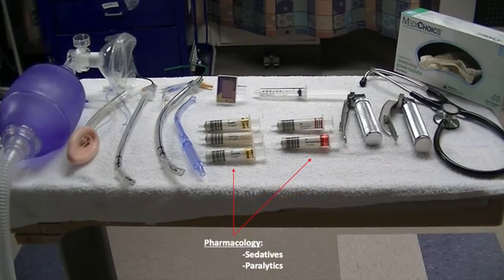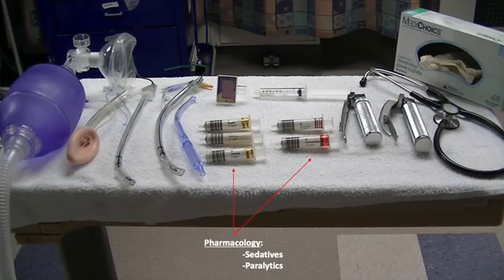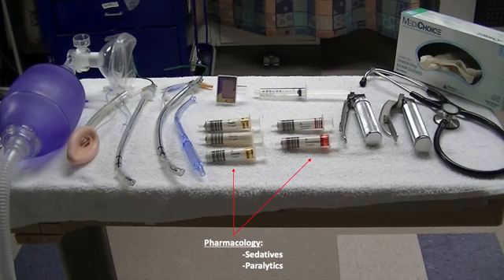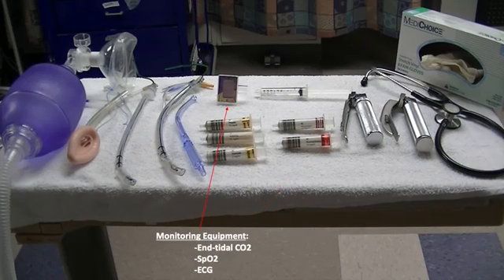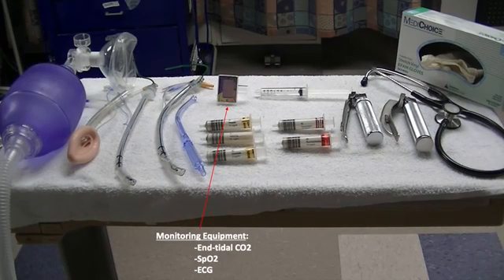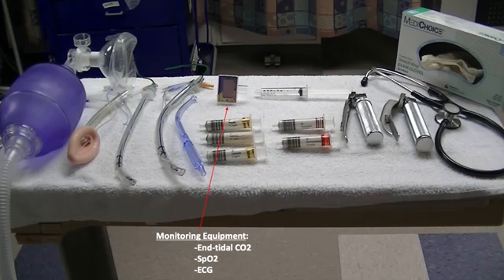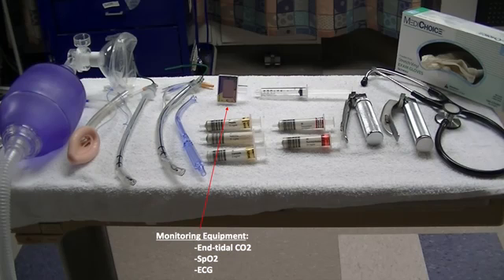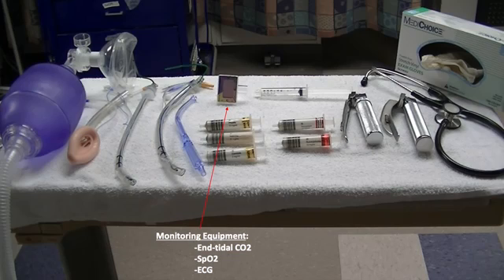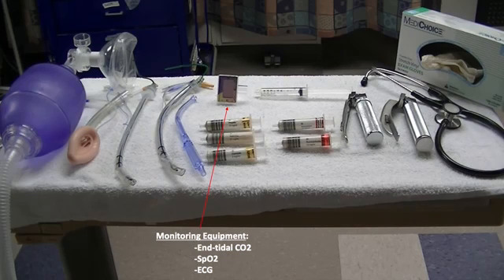The P in SOAPME stands for pharmacology, and we have already covered sedatives and paralytics in great detail. Finally, monitoring equipment. This includes a cardiac monitor, pulse ox, and blood pressure cuff, so you can assess real-time hemodynamics of your patient while preparing, pre-oxygenating, and intubating.